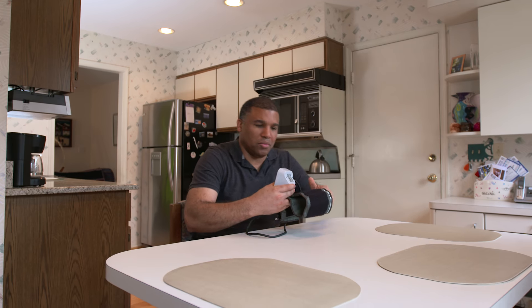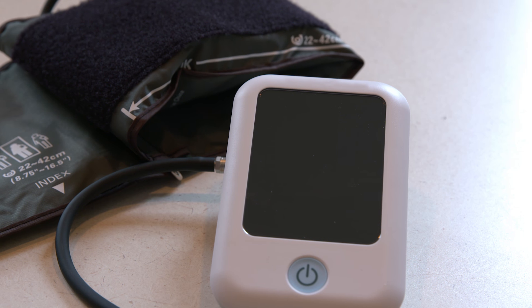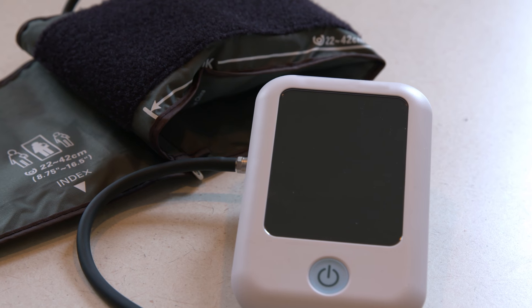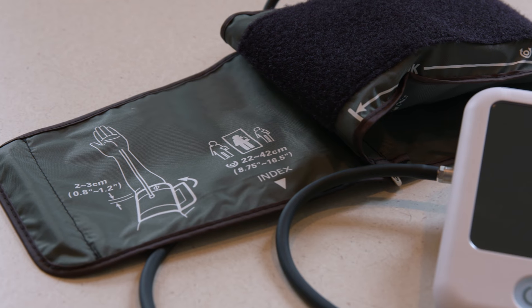One of the most accurate ways to measure blood pressure is to do it yourself outside of a doctor's office, in a comfortable setting like your own home with your own blood pressure monitor. In fact, recent national guidelines recommend self-measured blood pressure monitoring, or SMBP for short, and sharing these readings with your healthcare provider team. If you decide to buy your own blood pressure monitor, make sure to follow the instructions of your healthcare provider and make sure it's a cuff that goes around your upper arm and has an internal memory.